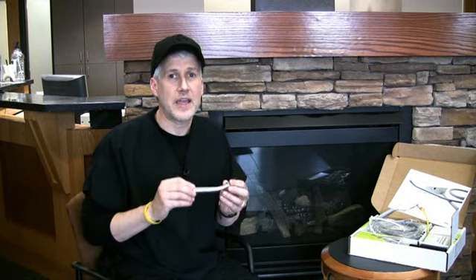What this whole thing does — as the handpiece is turning and the burr is making contact with tooth structure, filling, prosthetics, or whatever — there is a way that the handpiece sends information back to this controller box, which is located and hidden inside the dental unit. Whenever the handpiece starts to experience torque decrease, lag, or stall, it sends a message back to the controller box, which then puts more air into the airlines. This overcomes the lack of rotation and torque, and keeps the handpiece from stalling while keeping torque constant.